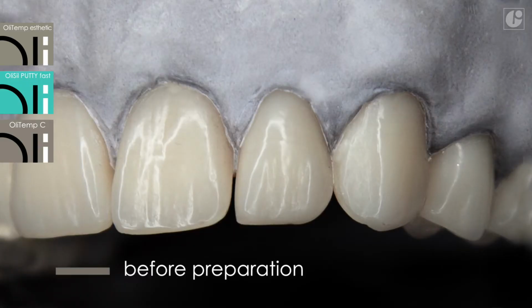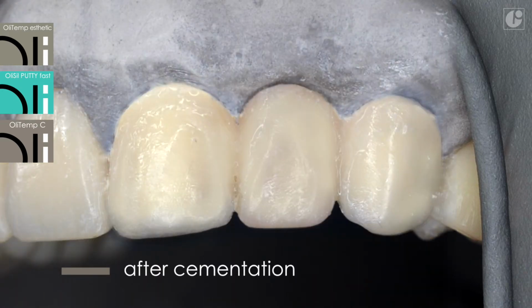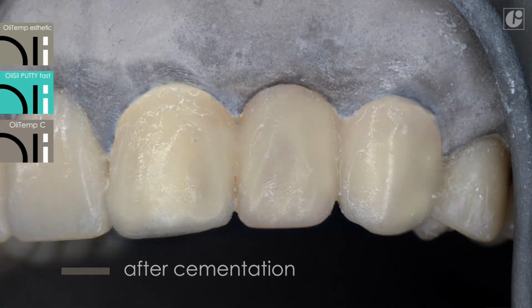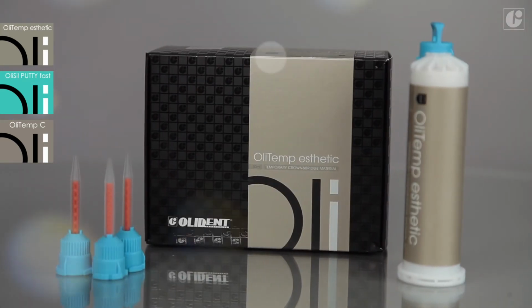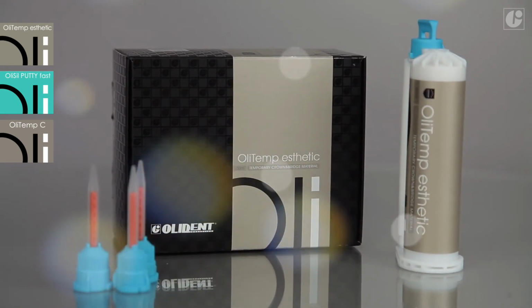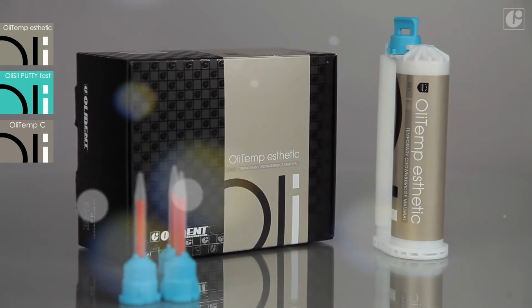An anatomically compatible temporary restoration is the key to functional and aesthetic protection of tissues. High-quality OliTemp materials make it possible to perform successful temporary treatment, which also guarantees that the final prosthetic effect will meet all expectations.